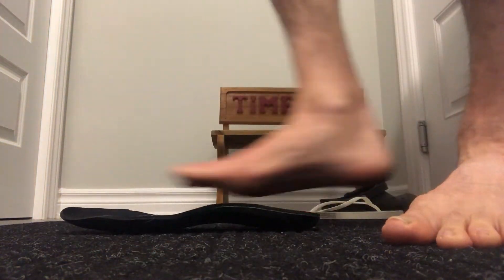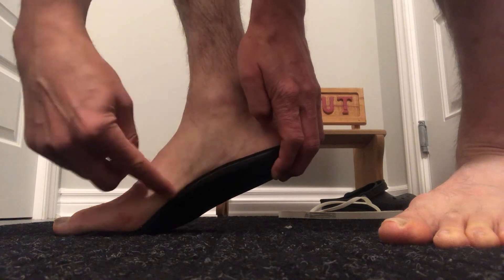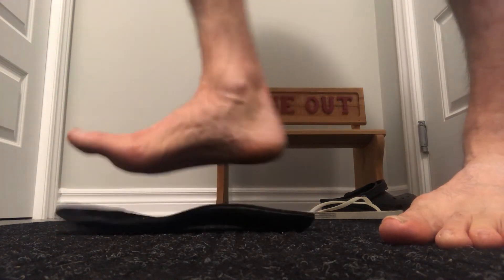It shouldn't be too high — if it's causing discomfort, it's going to hurt when you walk on it for long periods. There shouldn't be any spaces on the orthotic. So with my orthotic here, I place my foot in — see how it's contoured all the way through. I lift it up and it's still contoured to my foot. You're not seeing a space underneath or to the side — that's usually a good indication the orthotic has good arch support for you. Always break in your orthotics one hour at a time each day, so you're not doing it all at once, as that can cause big discomfort in the foot since you're not used to it. It's like breaking in anything — you don't wear them the whole time right away.